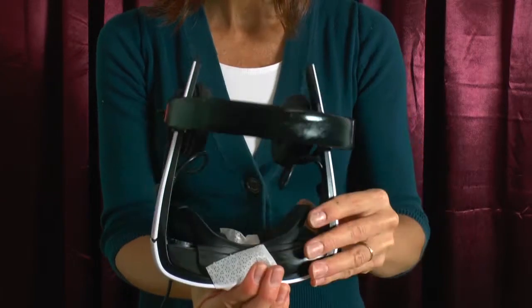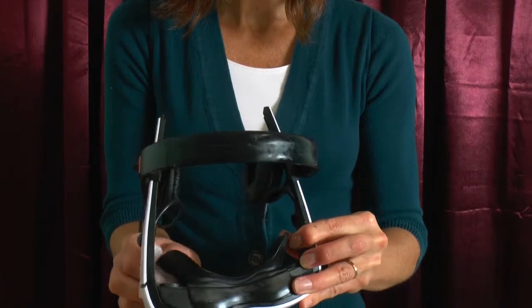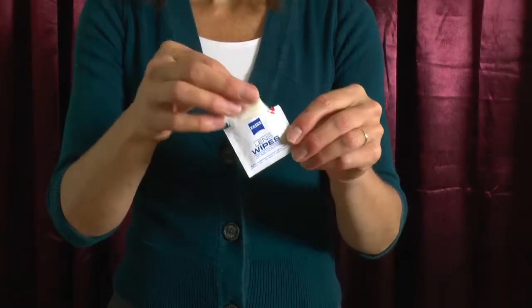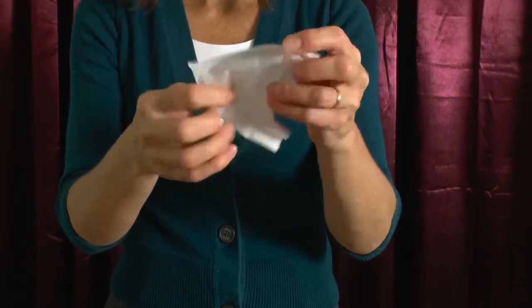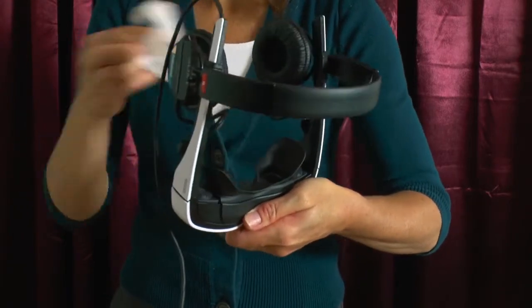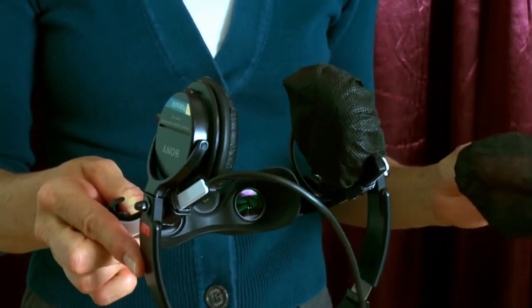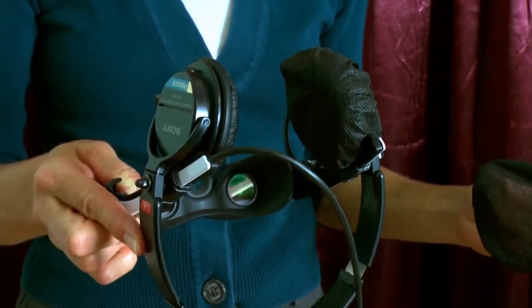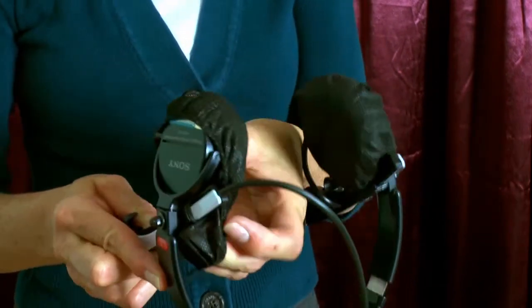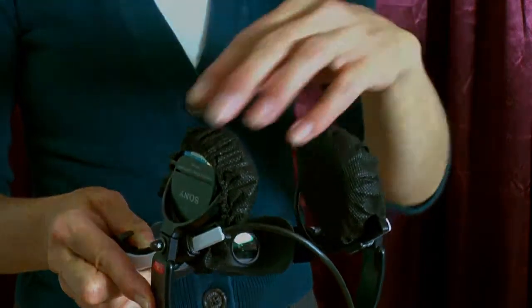The Cinemizer should be cleaned after each use. It is recommended that the entire body of the device, including the headphones, be completely wiped with a low-alcohol-based disinfecting wipe. Only eyeglass cleaning cloths should be used to clean the viewing lenses. The ProMed system includes Zeiss lens cleaning wipes and disposable headphone covers. The covers slide easily over the headphones and should be replaced after each patient's use. Both the Zeiss cleaning wipes and disposable headphone covers are available through your order system.